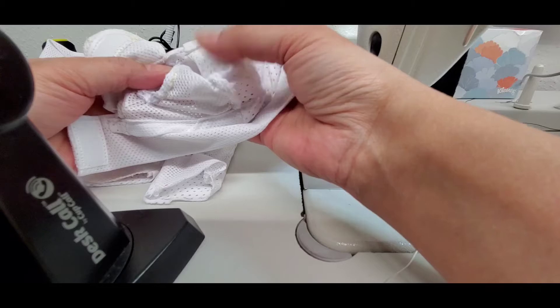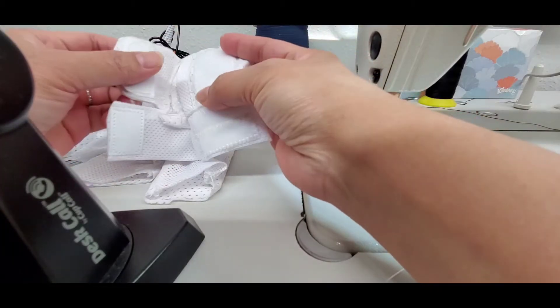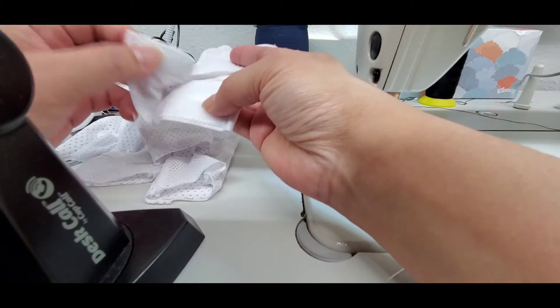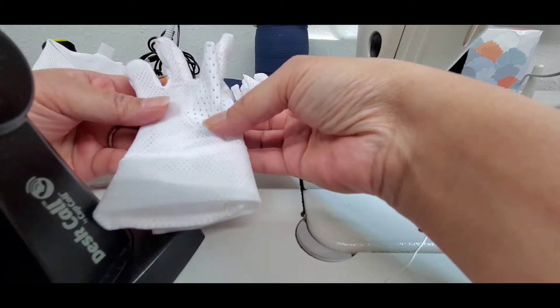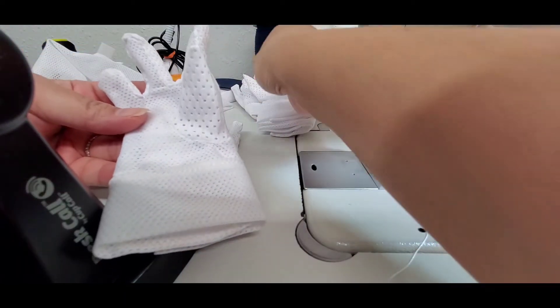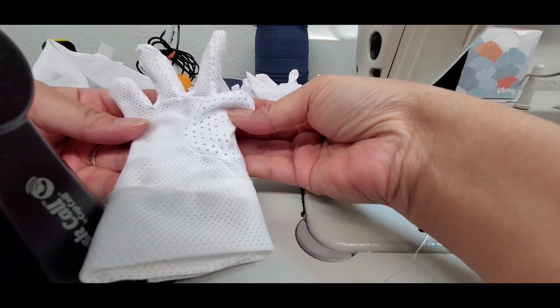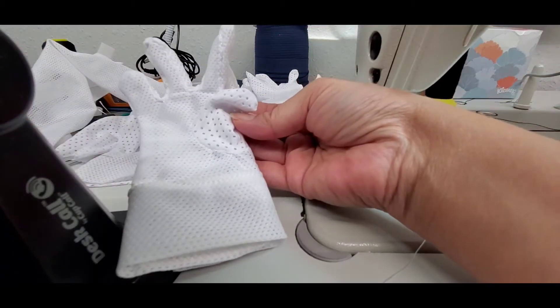To put it in, open it all the way up, put their fingers in, close it up. So these are considered accessible gloves for little guys. On top of these I will put fingertip protectors on and I'll show you how that works.